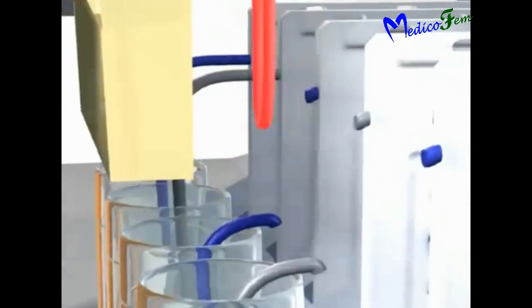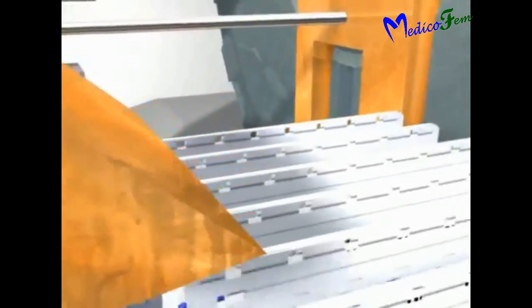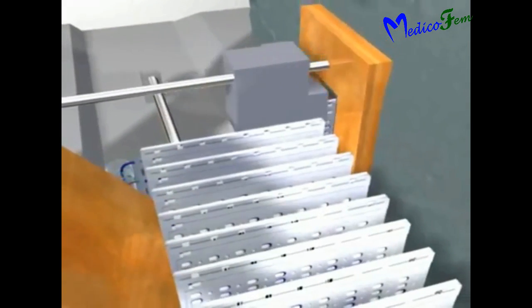Now all cards are pushed into the incubator rotator one by one.